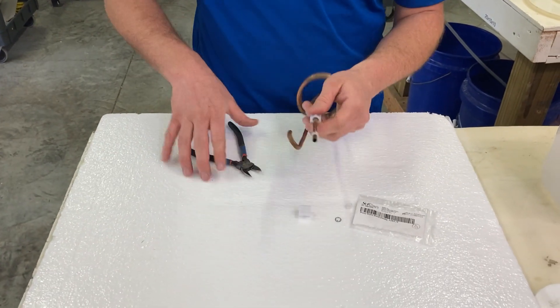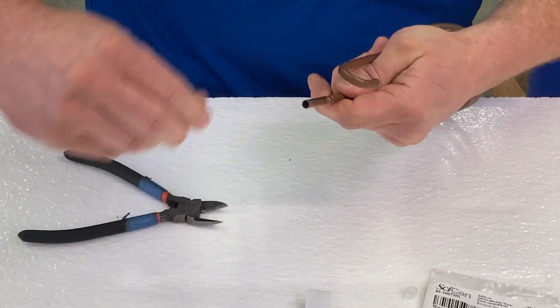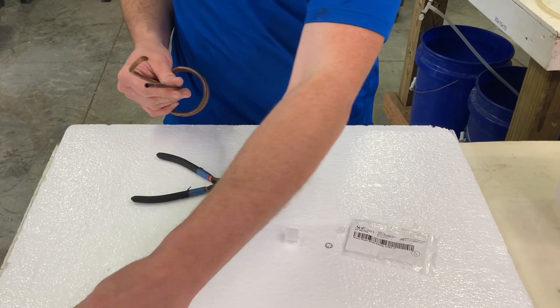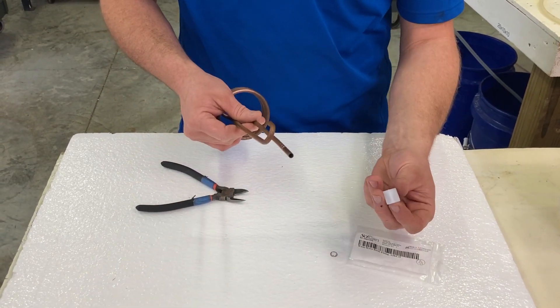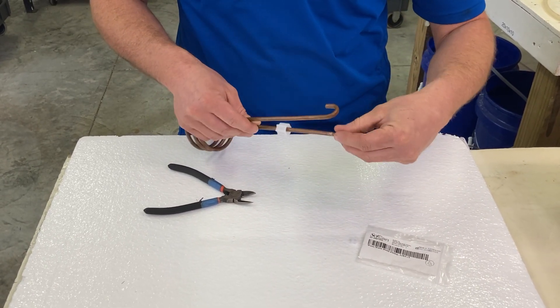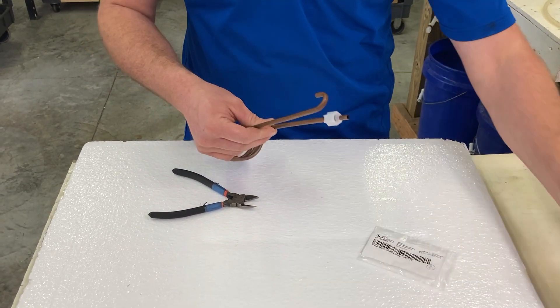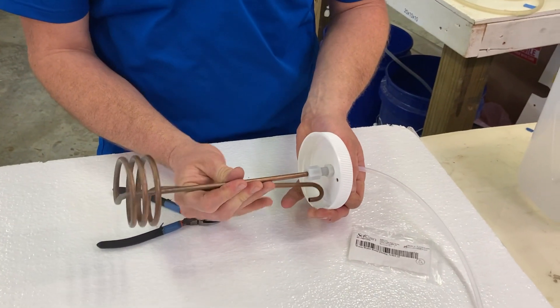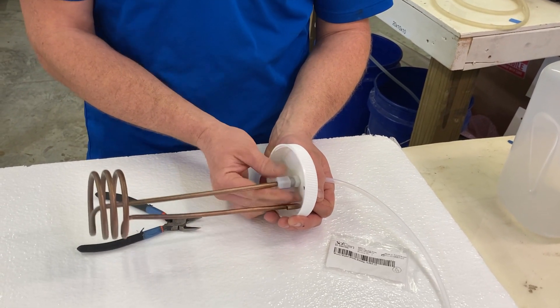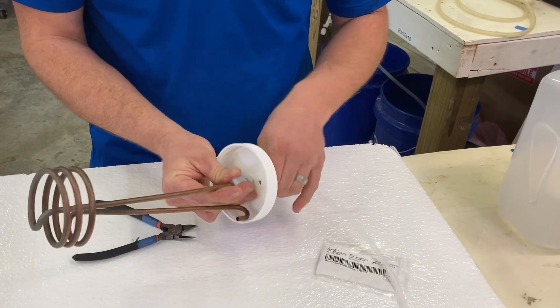On the coil, you're going to have to use your diagonal cutters again. You can cut the metal and the plastic grommet off — go ahead and discard those. Pull off the old plastic nut. The new one will slide on, then your metal grommet goes on, and then the plastic. Once again, to get your spacing, slide that into the cap as far up as it'll go and simply tighten that down. You do not need to use pliers — you can do finger tight.